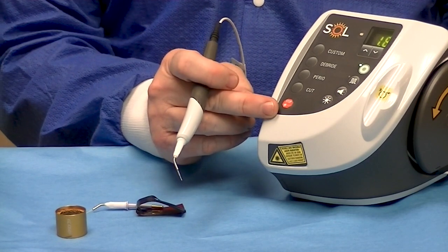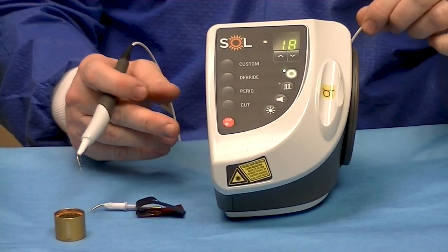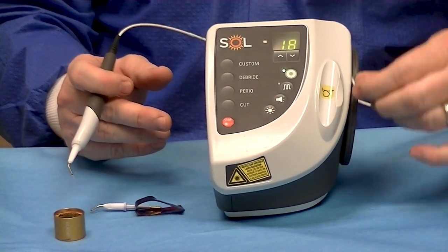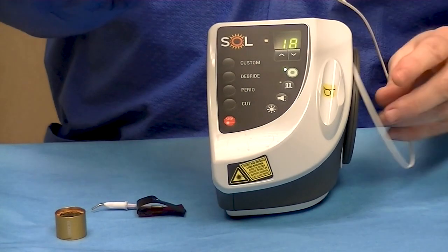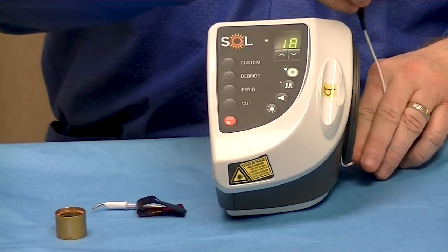There's also an emergency stop. The last thing to realize is you have to wrap the cord carefully. When you're done using the unit, don't pull on it — there's a fiber optic within the cord itself. So be very conscious of putting it back into the correct position.